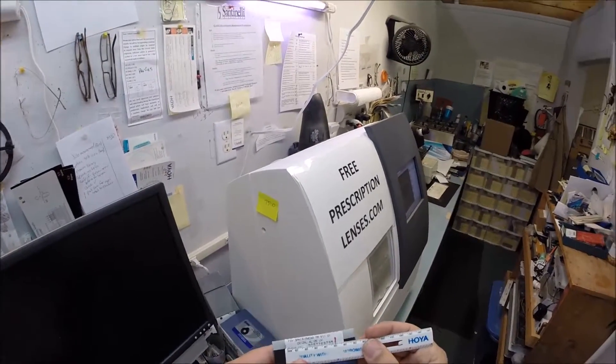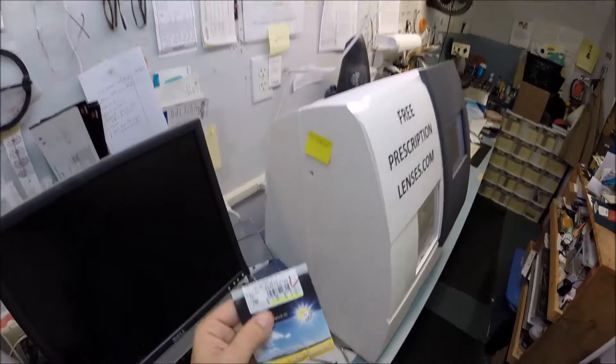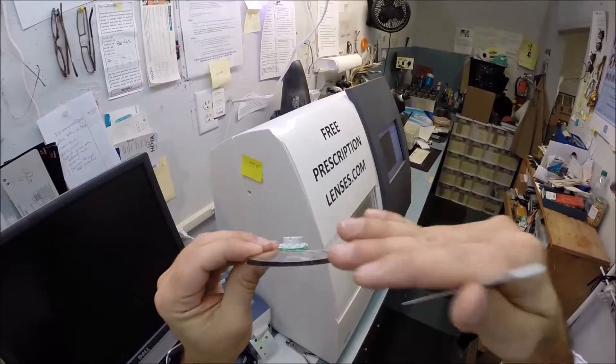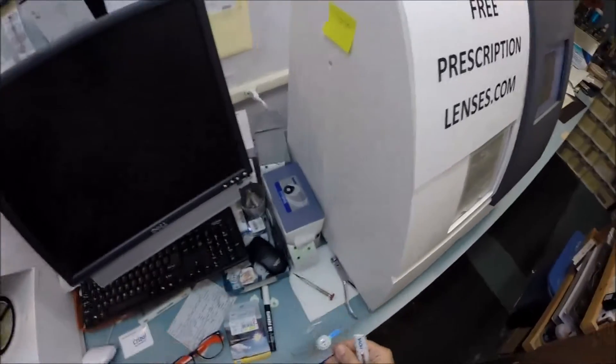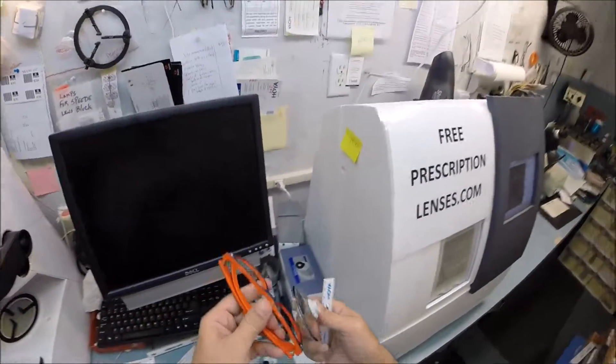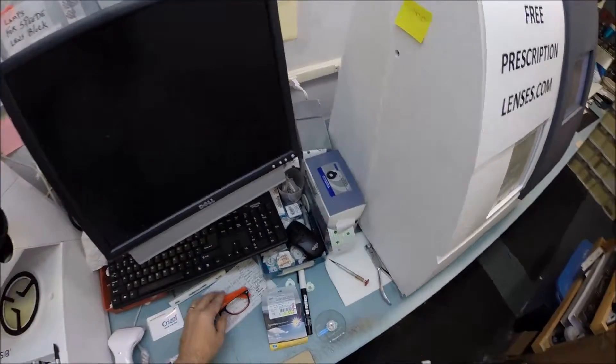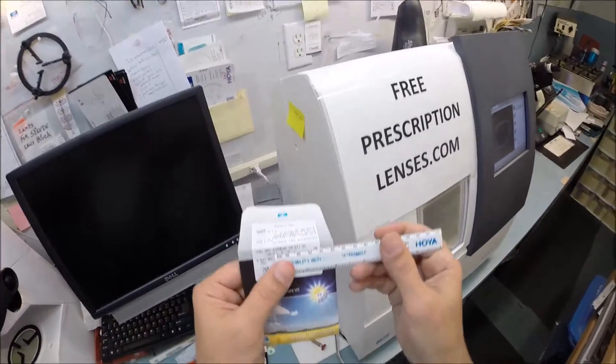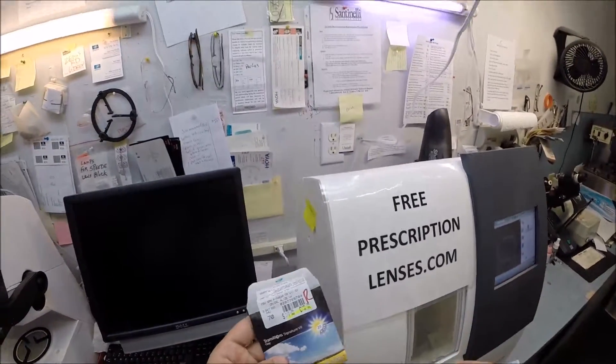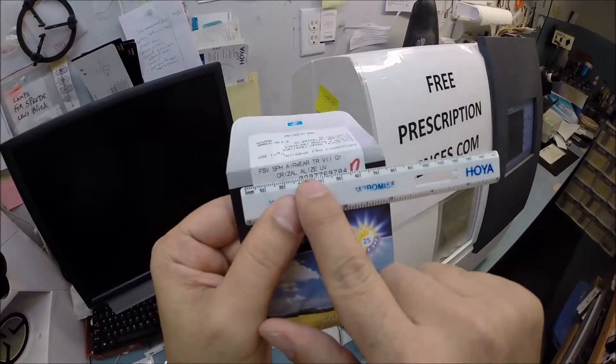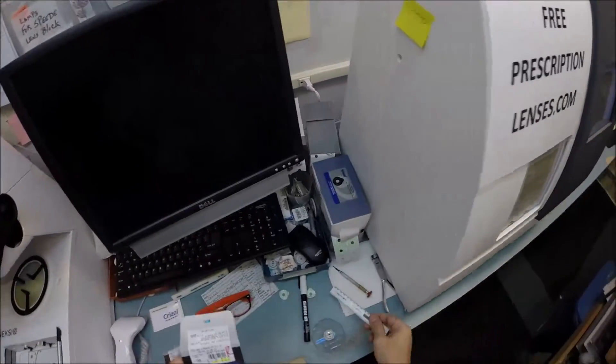We know what the sun's harmful ultraviolet rays can do to your skin. Your eyes are eight times more sensitive than your skin, so you have permanent sunscreen for your eyes. It never needs to be reapplied like the lotions, creams, and sprays. This is permanent. The other nice thing is it's an aspheric lens, meaning not only is it a thinner lens, but the front curvature is flatter, giving you a wider field of view and cosmetically fitting best inside the frame.